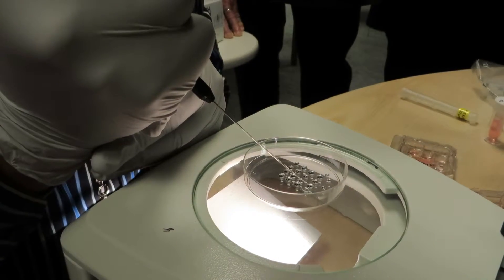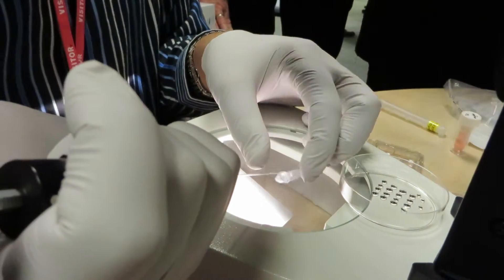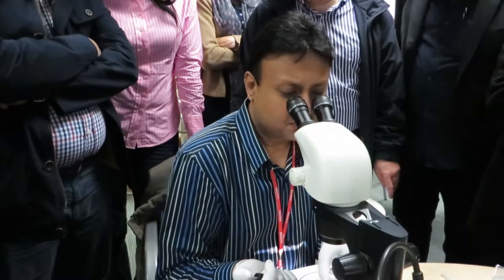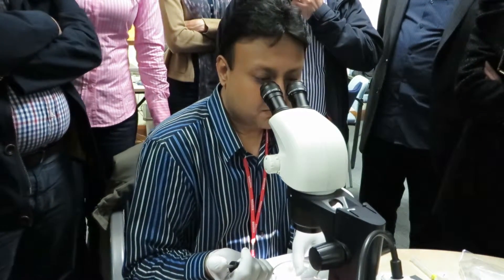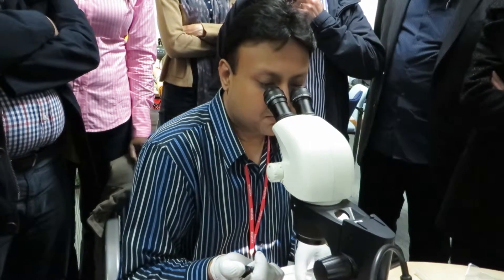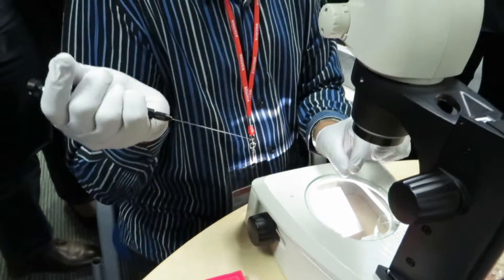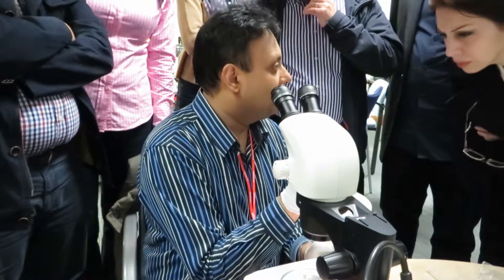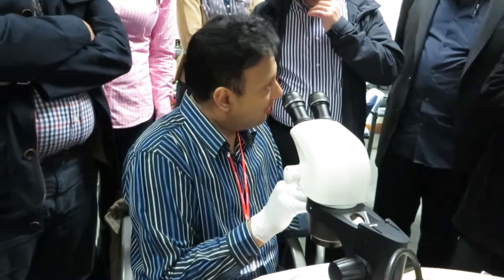Release some solution around your embryo and pick your embryo up. Once you see the cell come out of your capillary, then you stop at that. The total volume in your capillary should not be more than 2 microliters — we prefer it to be 1 microliter.